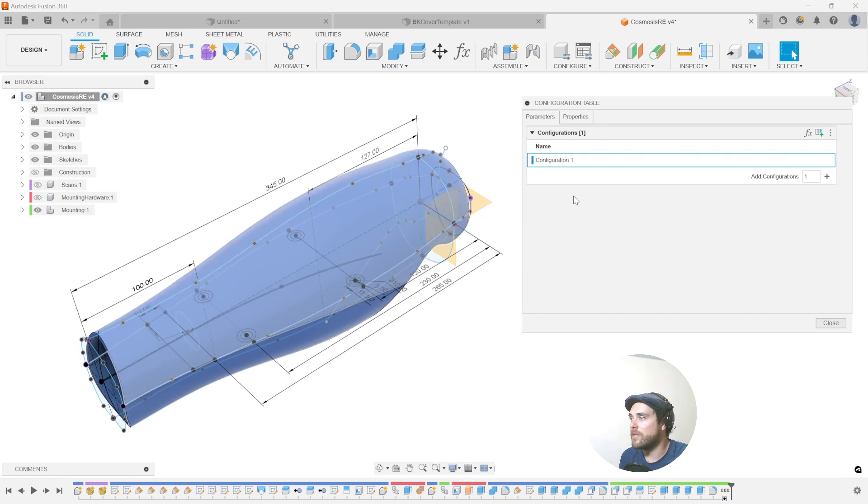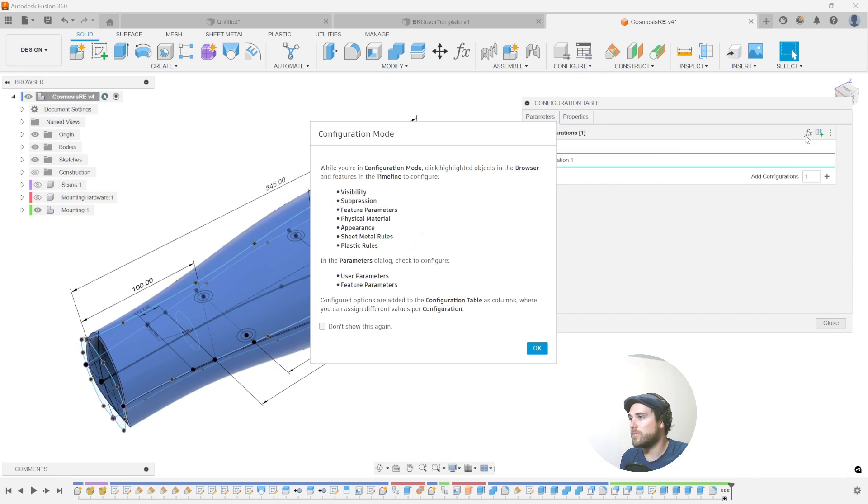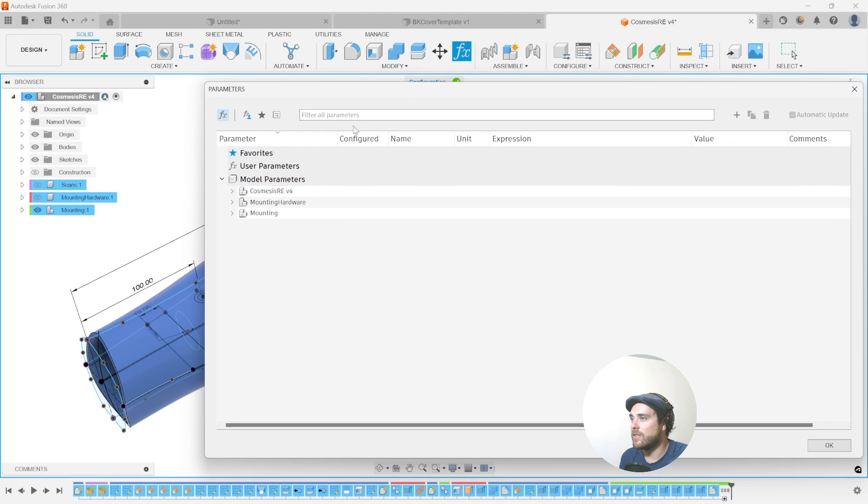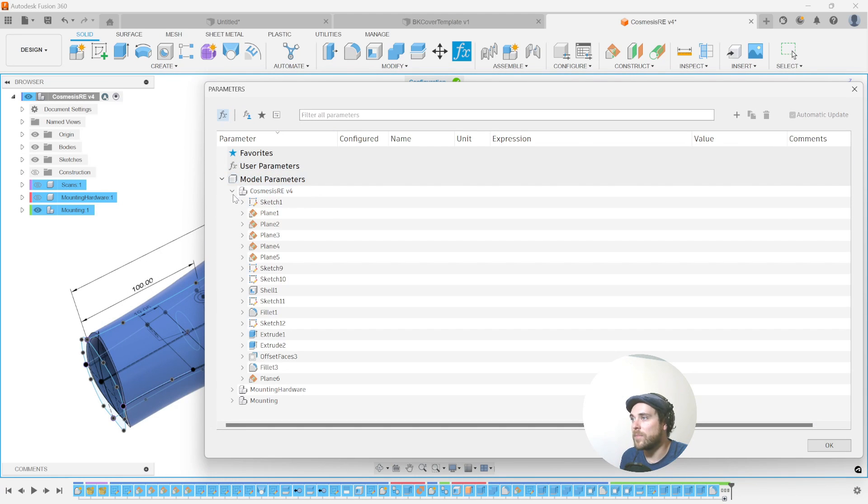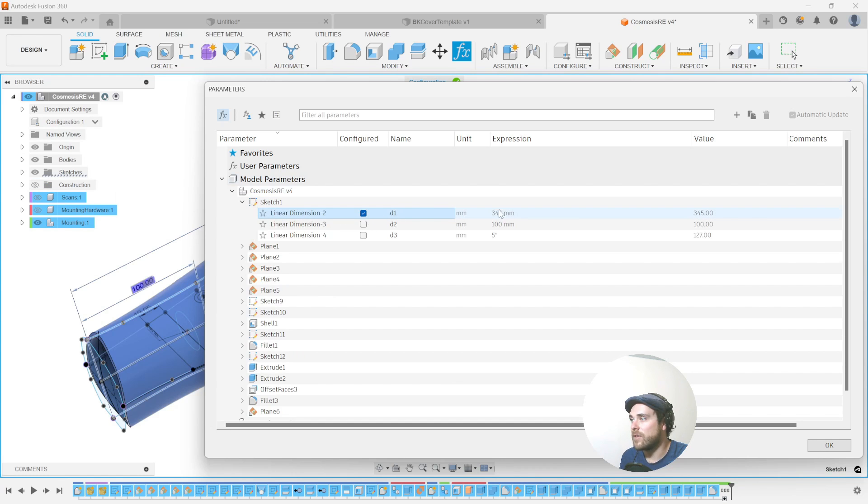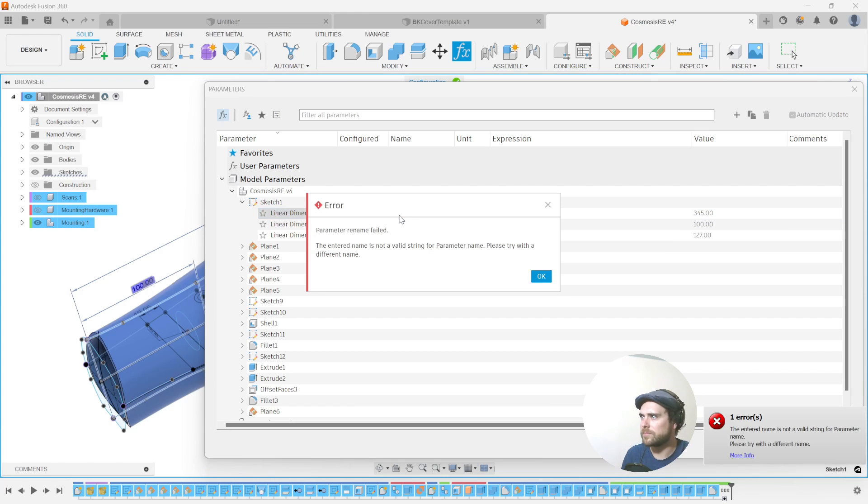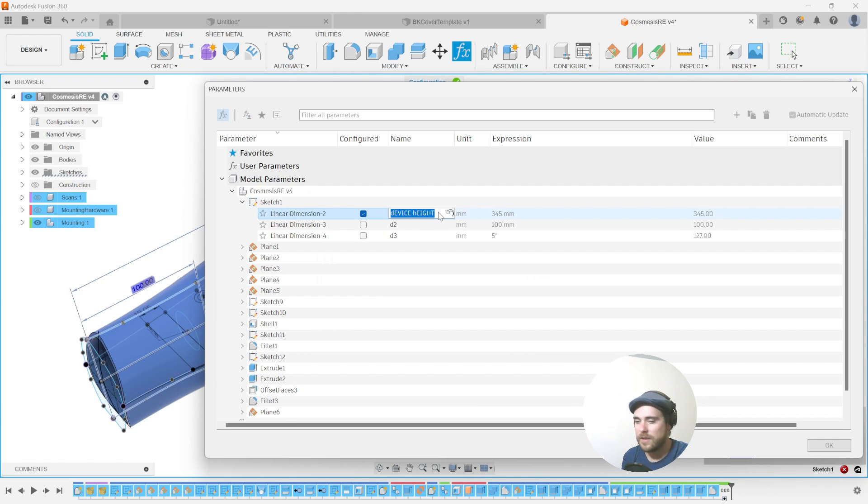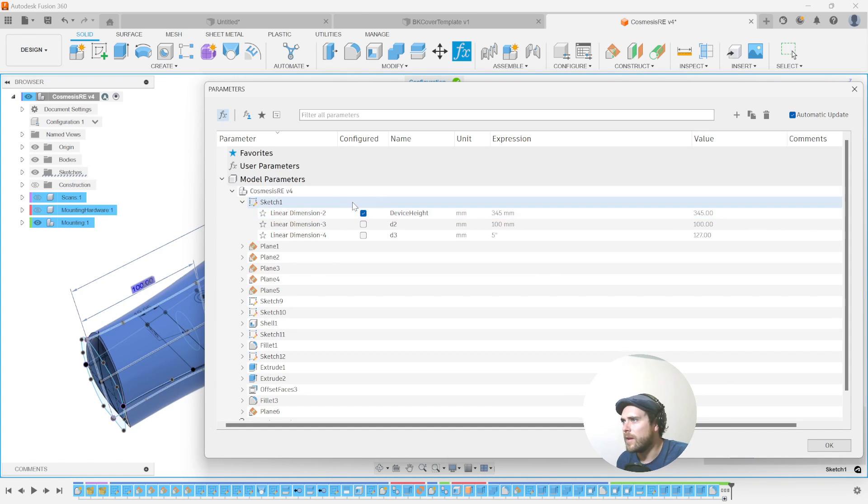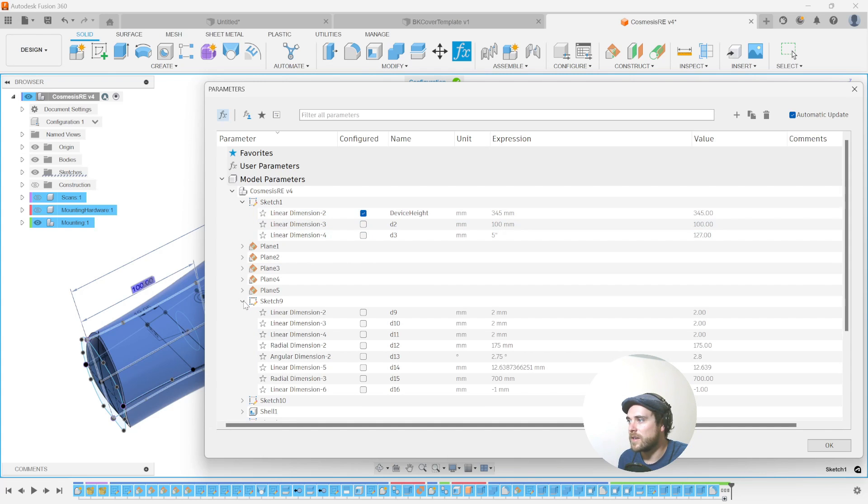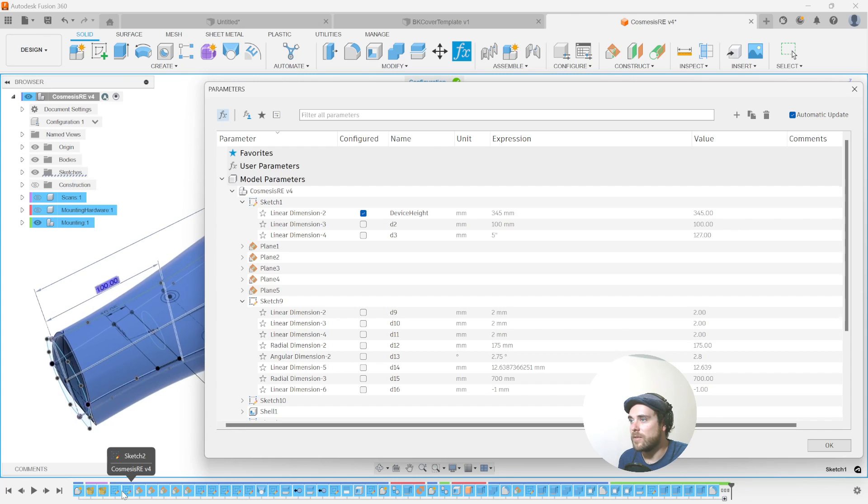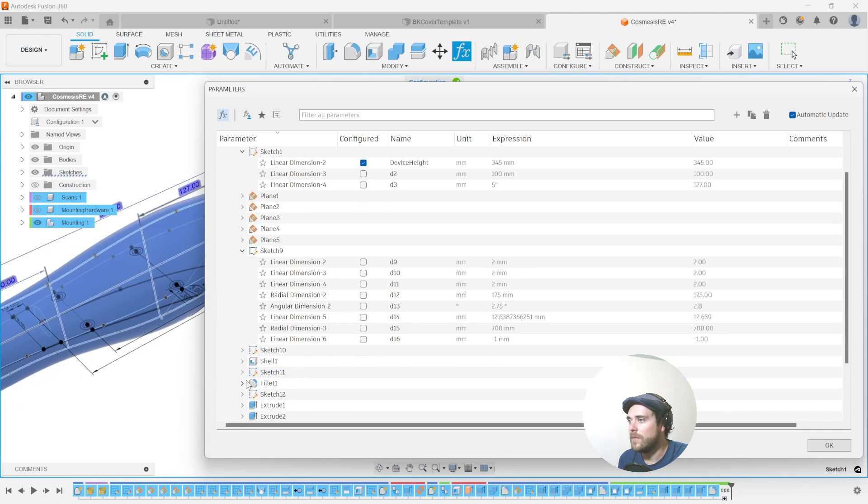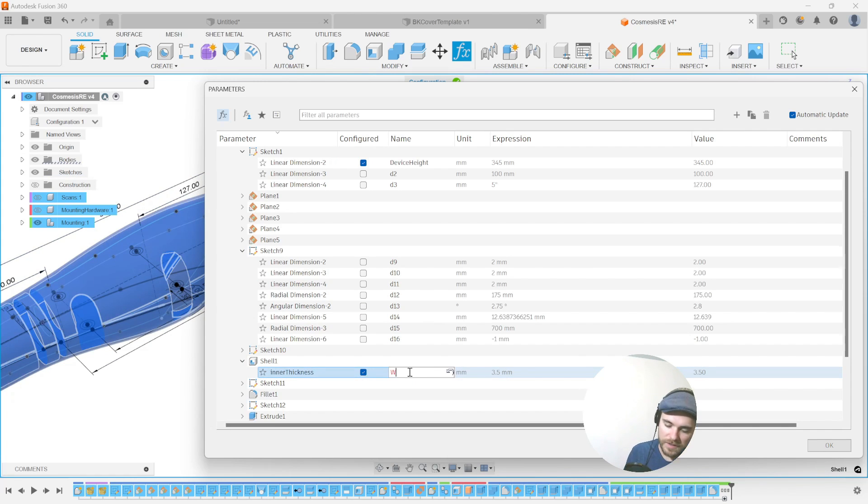So again, we're going to start off with this as our base configuration. Let's go into our parameters window and let's find some of the main dimensions that are driving this design that we're going to want to use. So looking at Sketch 1, this is our device height, top to bottom. So I'm going to make sure I call that one out as device height. And the name is not valid again. Oh, I've got to get better at this. Device height. 5 inches, 100 millimeters. I think those are okay. Let's go down into Sketch 2. If we want to validate some of these, we can hop in here or here. I think one of the other ones we want is the shell thickness. So this is going to be our wall thickness.